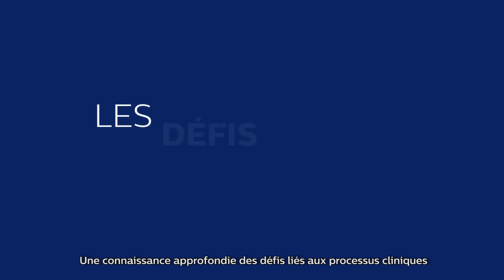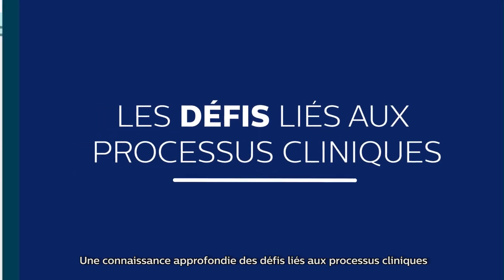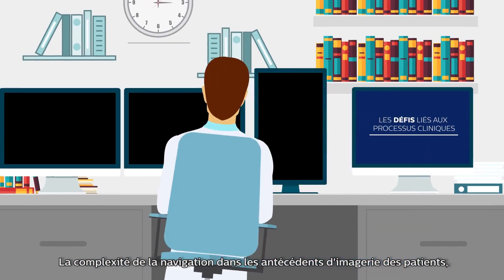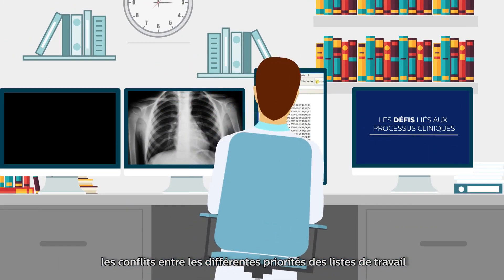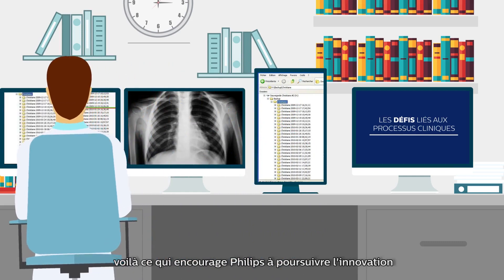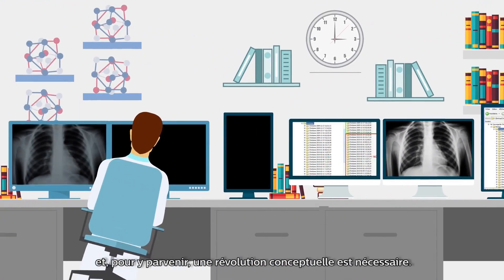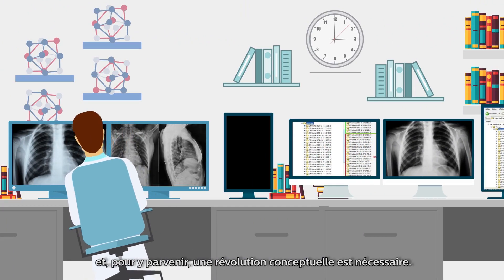A fundamental understanding of the challenges to clinical workflow, the navigation complexities of patient imaging histories, competing work list priorities, and usability detractors — these are the tenets that drive Philips to continue to innovate, and to get there means a paradigm shift.